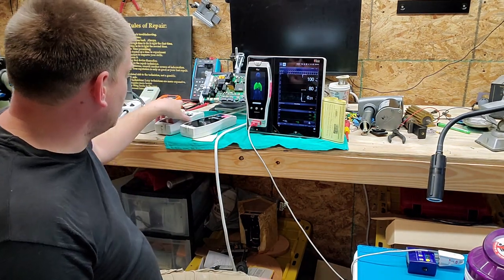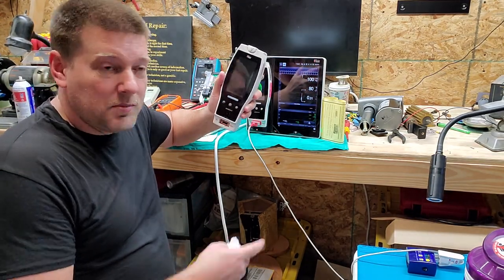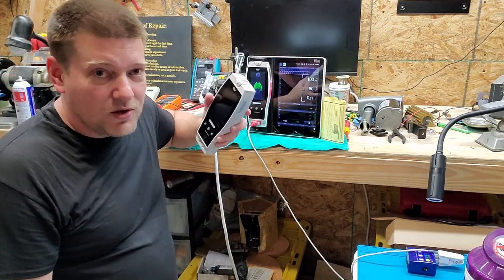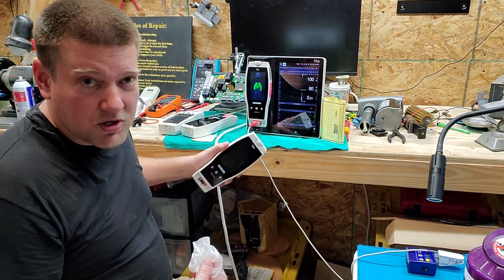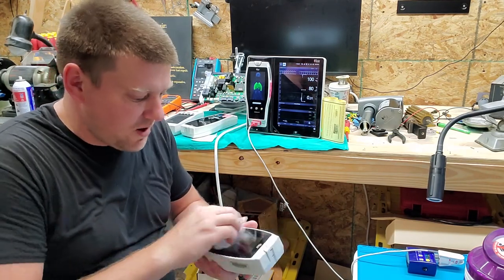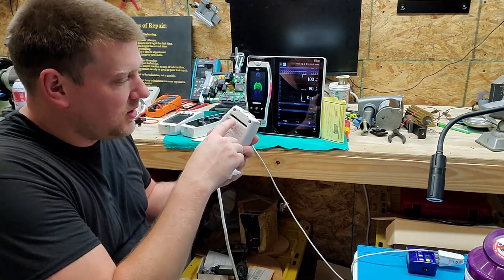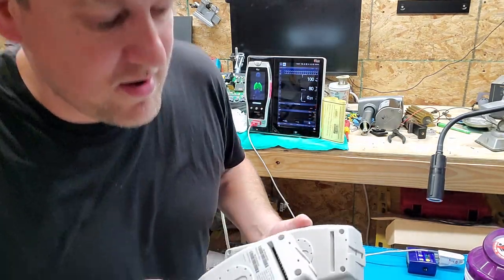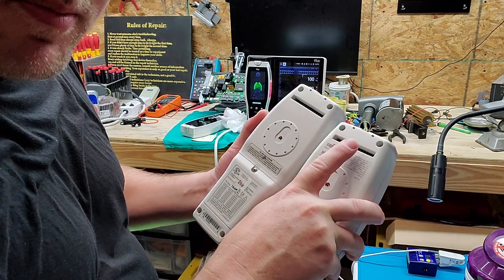Tonight I'm just experimenting — cleaning these touchscreens and letting them charge up enough to test them when they're not in the dock, because when they're in the dock they go into docked mode. Not all of my Masimo units do that — I have a Radical 7 here that goes into standalone mode, which shows all the parameters on its own screen instead of on the Root's screen. When in standalone mode it shows it's charging, but not all the pins are used when charging, so there's probably something going on with the charge port on the back.